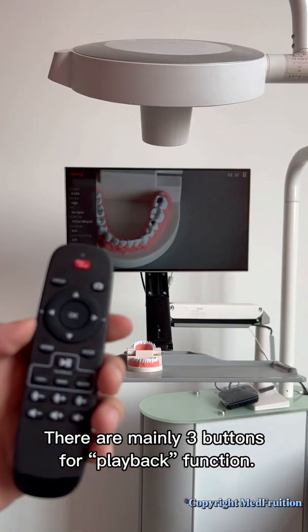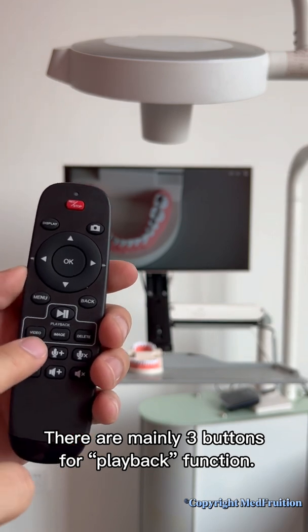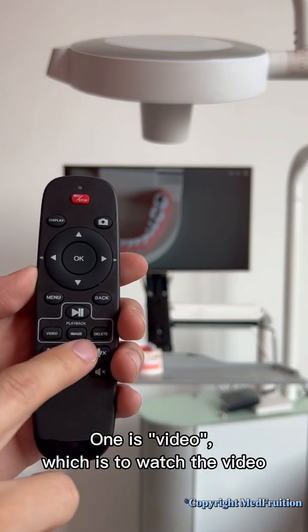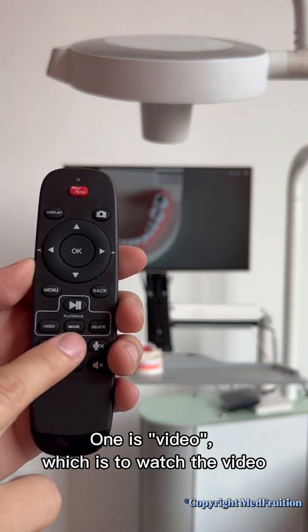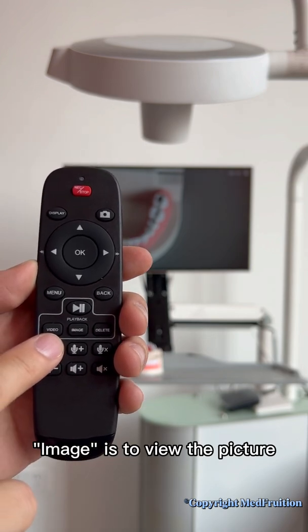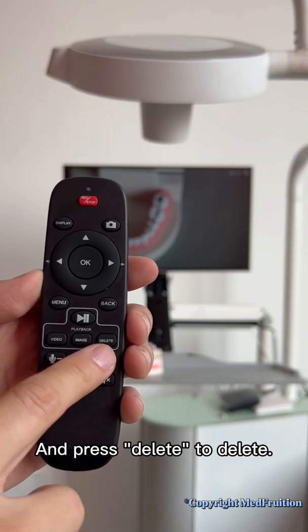There are mainly three buttons for the playback function. One is video, which is to watch the video. Image is to view the picture. And press delete to delete.